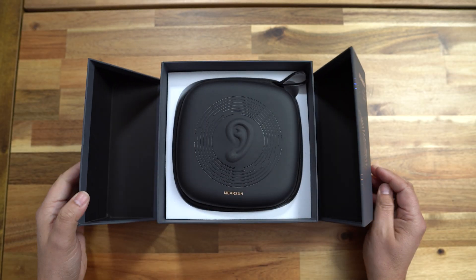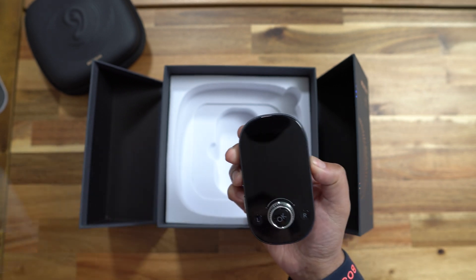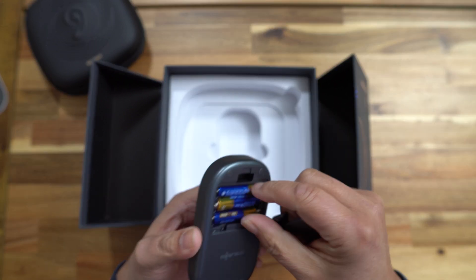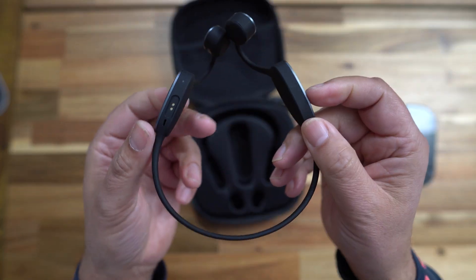Let's open up this rather impressive packaging. In here we've got a carry case which houses the actual earphones. We then have some instructions, and then we have the brains behind this innovative piece of kit, more commonly known as the fitting device — this is where you do all your tuning from. There are some batteries fitted in here, which is pretty cool. Inside the carry case we've also got a USB-A to proprietary magnetic connector. I absolutely hate proprietary connectors, but given the design and footprint of the earphones, there isn't really space for a conventional USB-C socket.